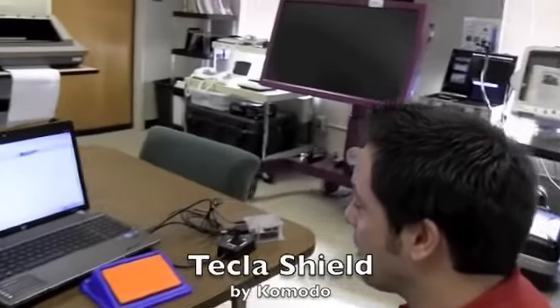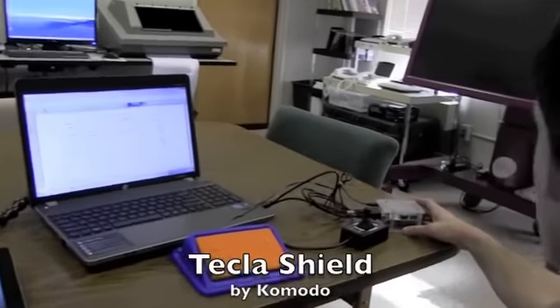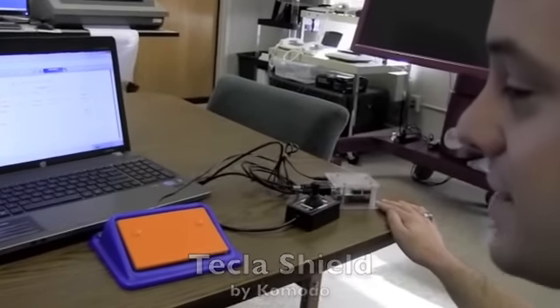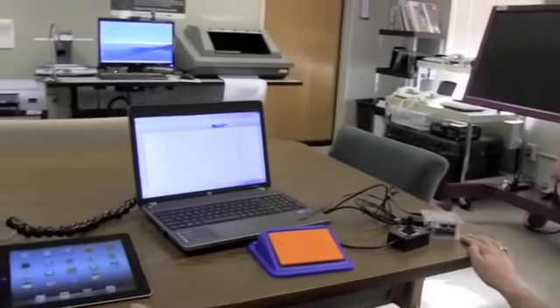The product is made by Komodo, and this box over here is called the Tecla Shield. It is Bluetooth connected to our iPad over here.